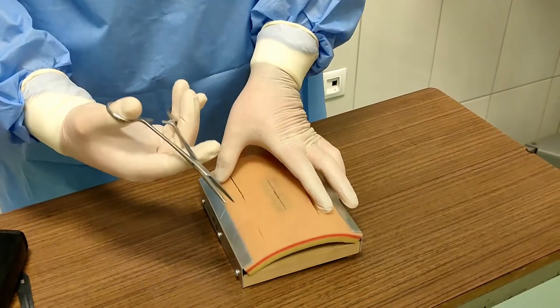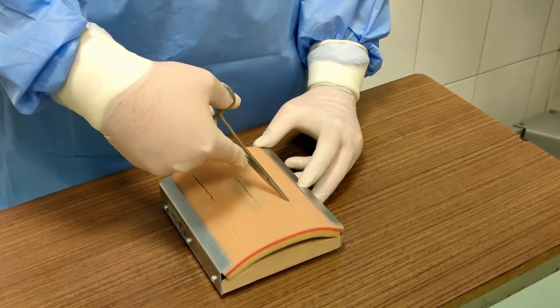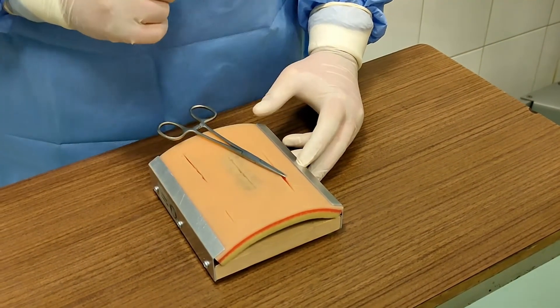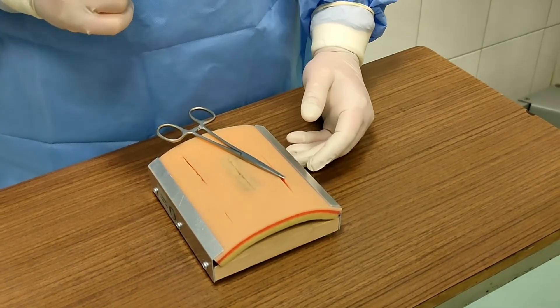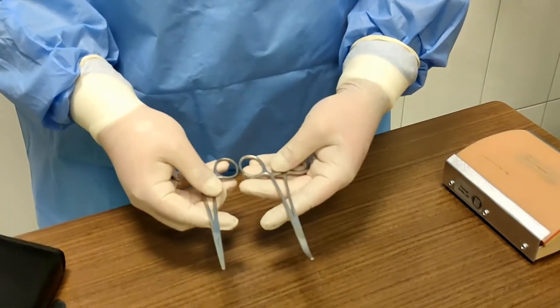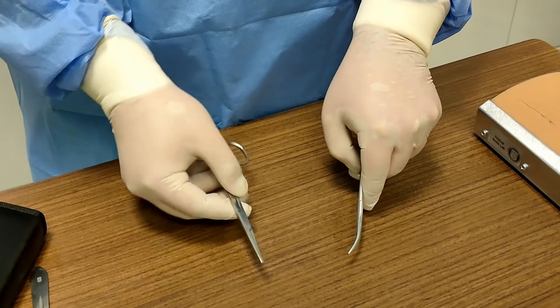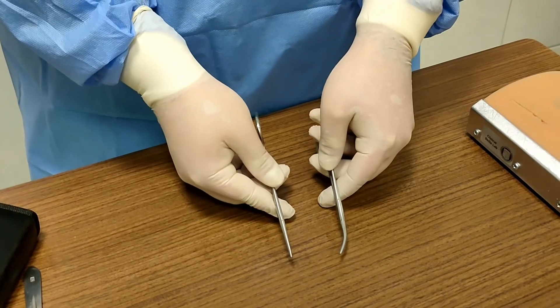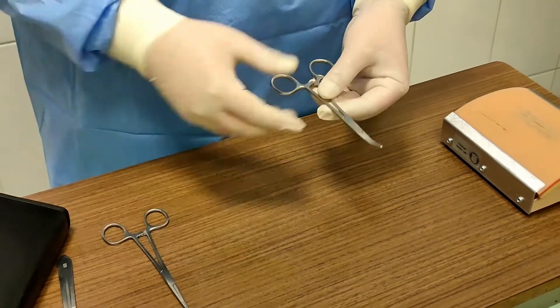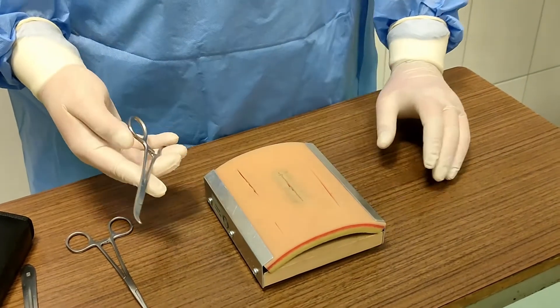We also have hemostatic forceps with a curved edge, which helps to reach and stop the bleeding in deep or small areas that are hard to reach with straight edge forceps.